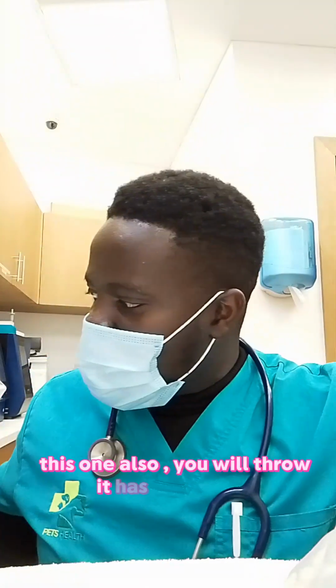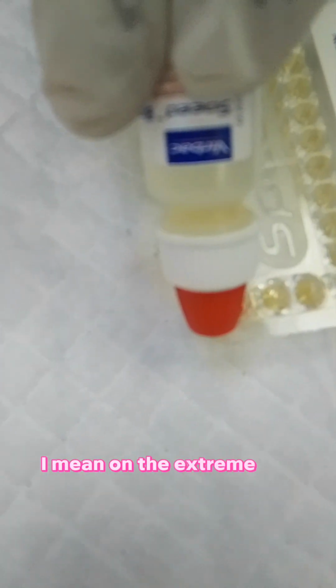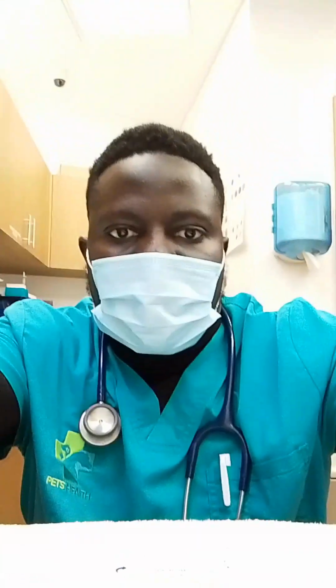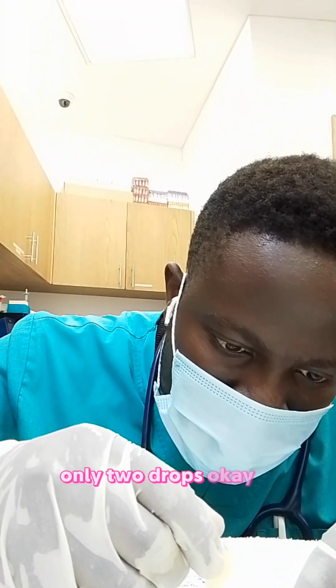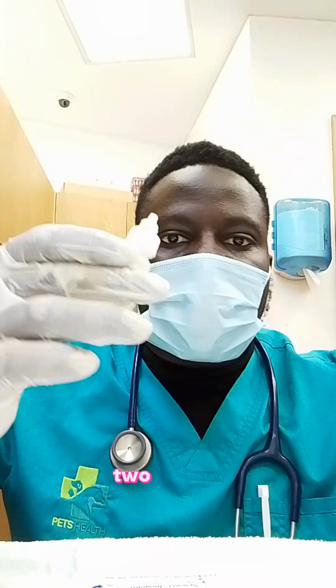this one also you throw, it has no use now. So you go to the Staphylococcus well, the one you're seeing on the extreme edge, my left. What you do is put only 2 drops in the Staphylococcus well, only 2 drops. 1, 2, only that.